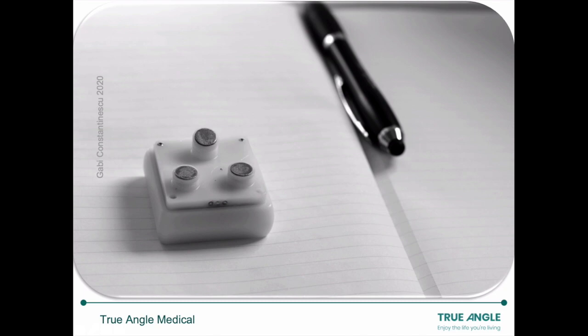Devices and sensors have many looks. I'll use this one as an example. It's an earlier prototype of our device. Now, in our field, we typically deal with three sensors like this.